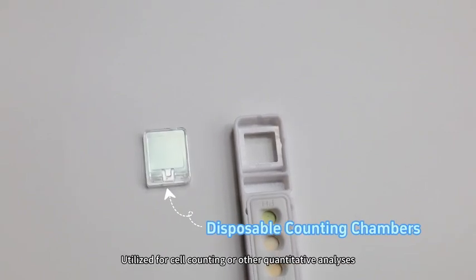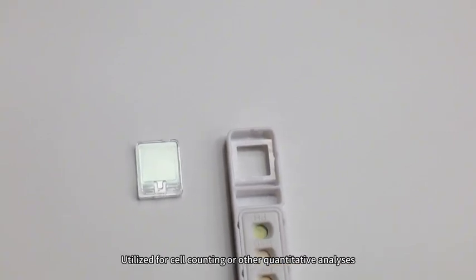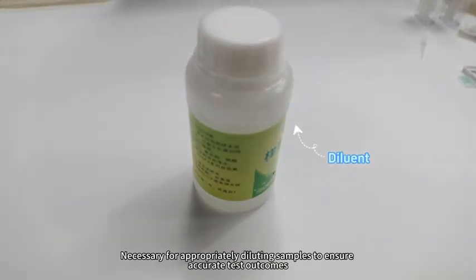Disposable Counting Chambers are utilized for cell counting or other quantitative analysis. Diluent is necessary for appropriately diluting samples to ensure accurate test outcomes.